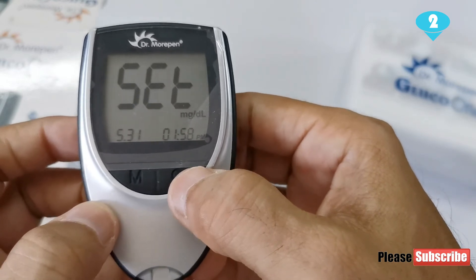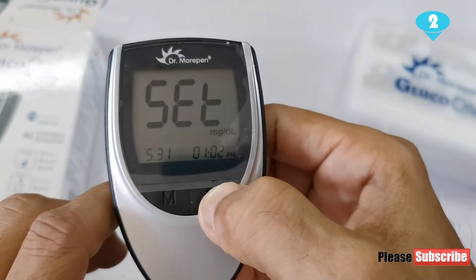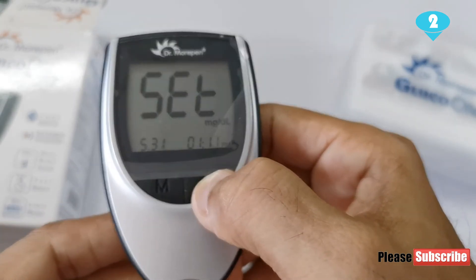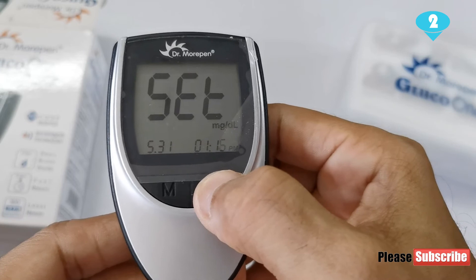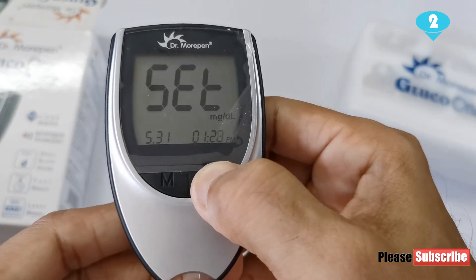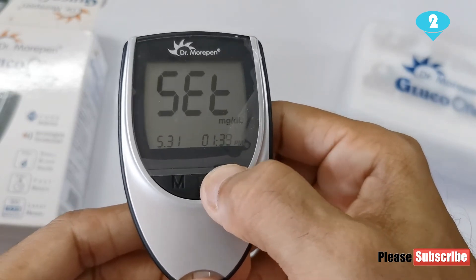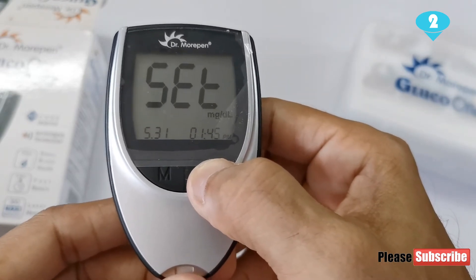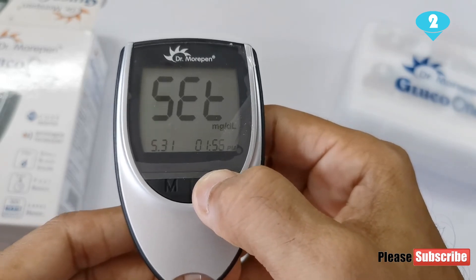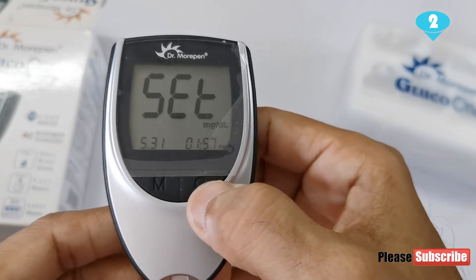Now I will go about changing the minutes. It says 58 minutes right now, which actually is the correct time, but I will still play around and show you. If I keep it pressed it changes fast; if I keep it pressed hard it changes automatically and goes really fast, instead of just hitting the button again and again. It's 57 right now and I will keep that adjusted and hit the M button.